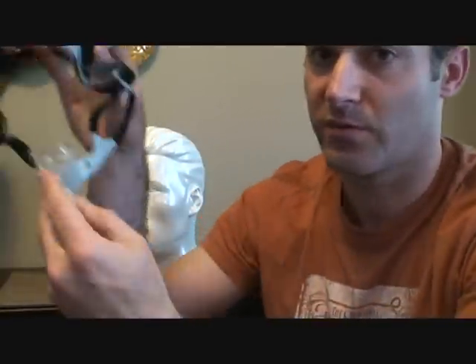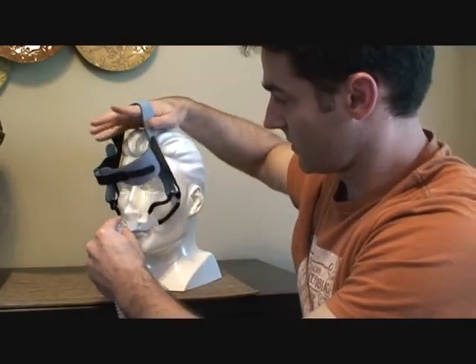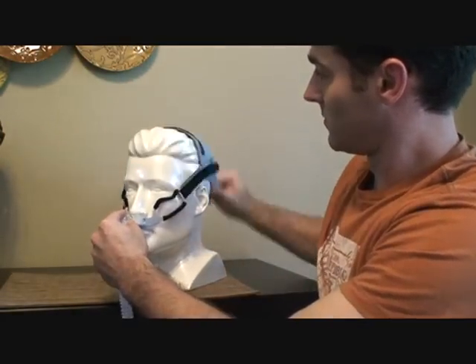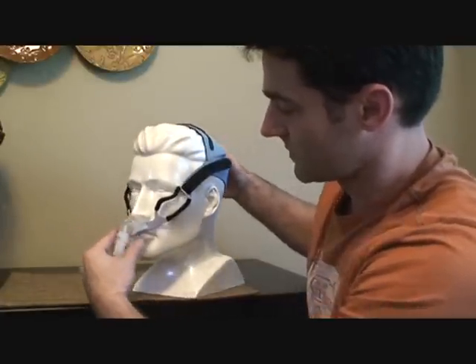Here you have it perfectly on, the way you want to fit it — nose first, pull this over the head, insert it into the nose, pull it over the head. It should fit in the nose just like so.